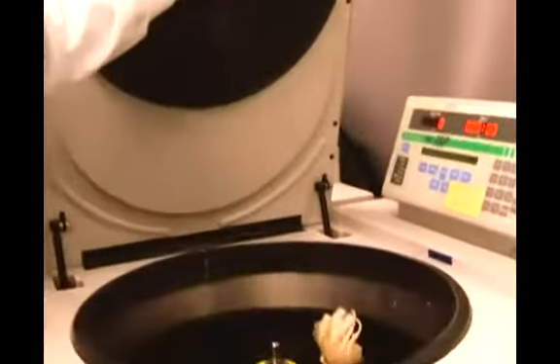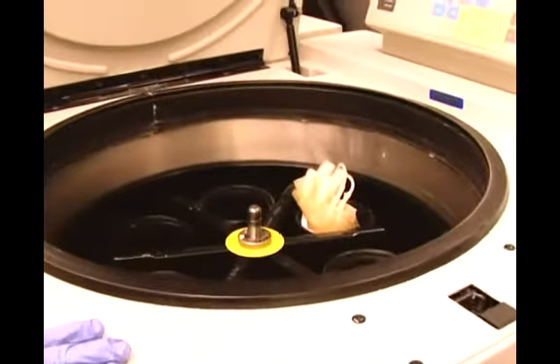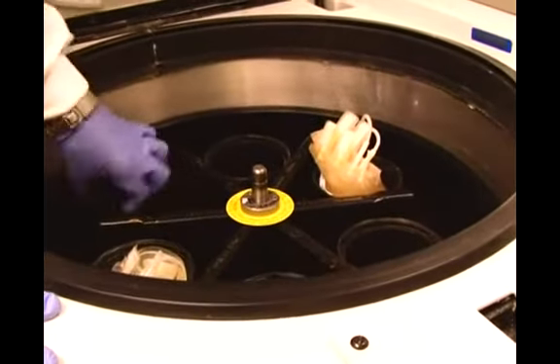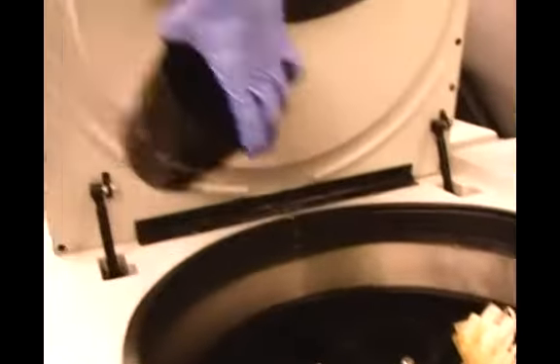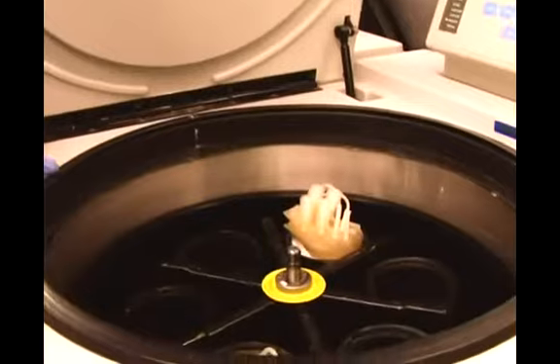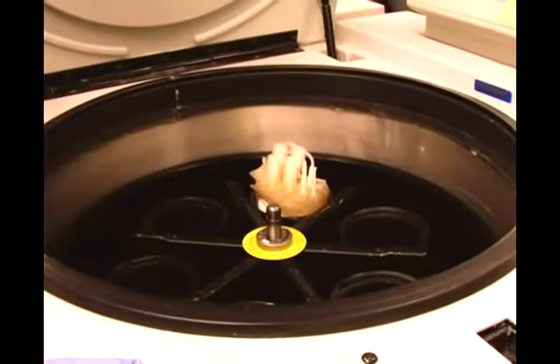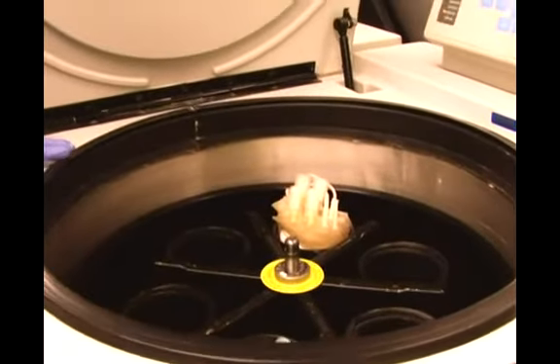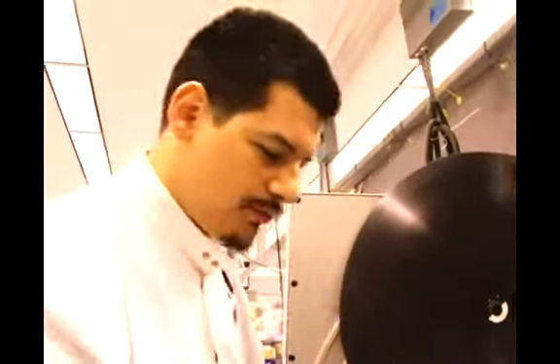What it does is we put these units in these containers. They swivel out and it spins at 4000 RPM for approximately seven minutes. It doesn't immediately stop after. It's allowed to slow down on its own so as not to disturb the units.